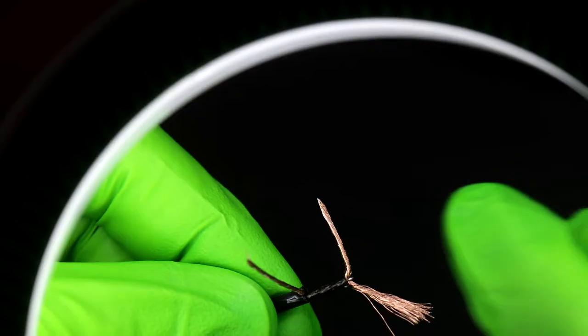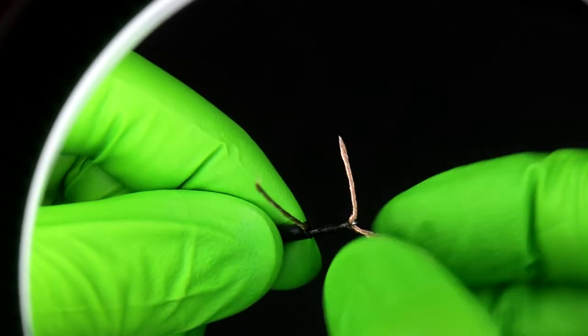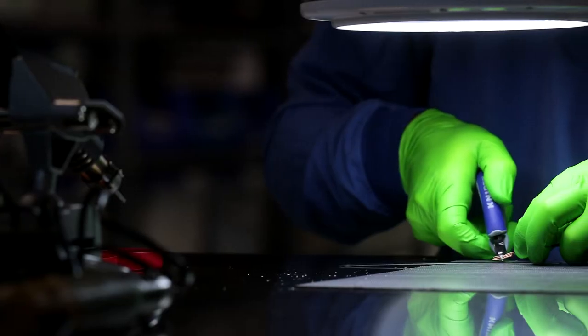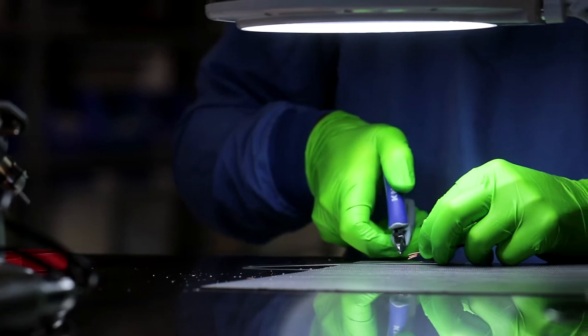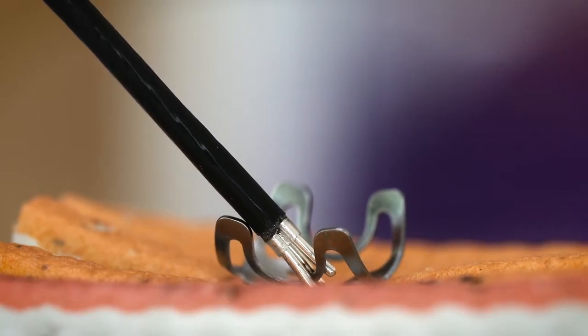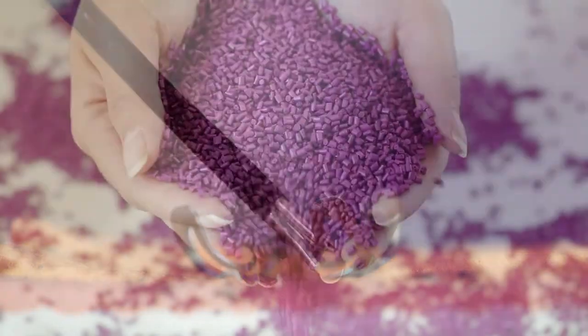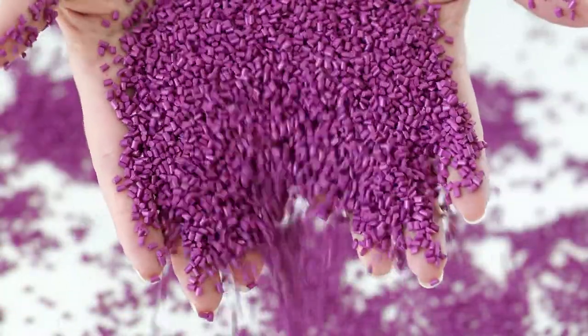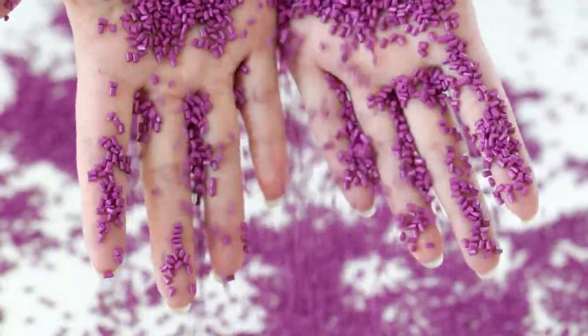The wire in our DC cutter is processed in such a way that 150 ampere can flow through the 2.6 millimeter instrument. With equal efficiency, our expertise flows into the development of new products.